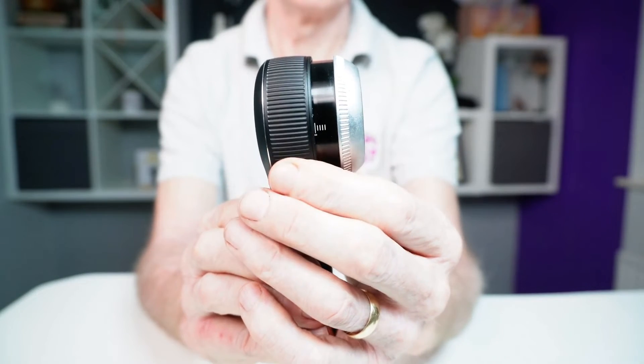There's a millimetre scale on the faceplate enabling you to measure skin lesions. You cannot use the dermascope when it's charging, but if you run out of juice, a few minutes' charge should be enough to get you going again. If no button is pressed for three minutes, there's an auto-switch-off function — which I tested and was three minutes exactly.